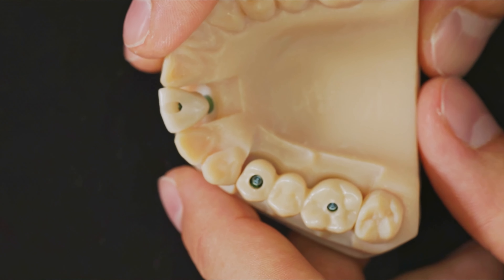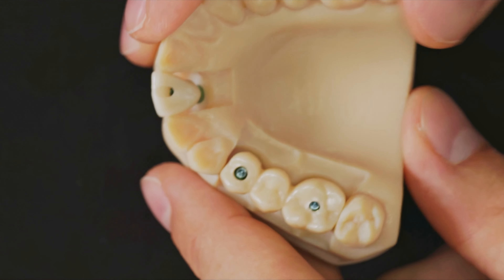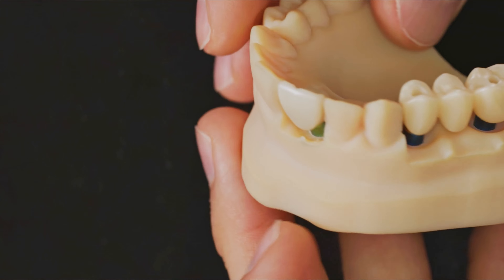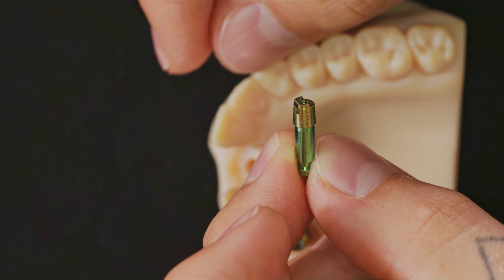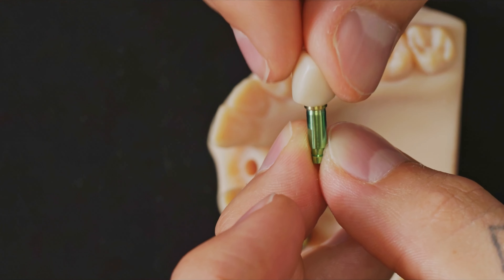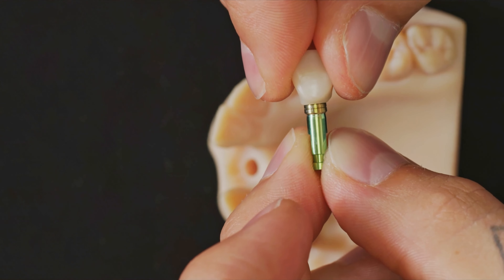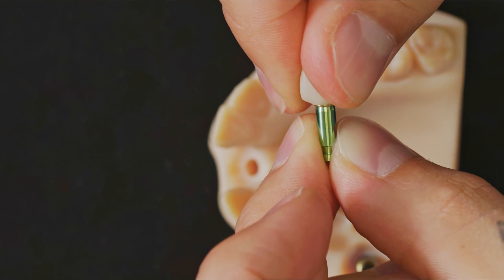What we'll get in both cases will be this. As you can see, the T-connect has an index that allows you to find the correct position of the crown. If the index is not positioned correctly, the crown remains visibly raised. Just rotate it until the correct position in its notch is found.